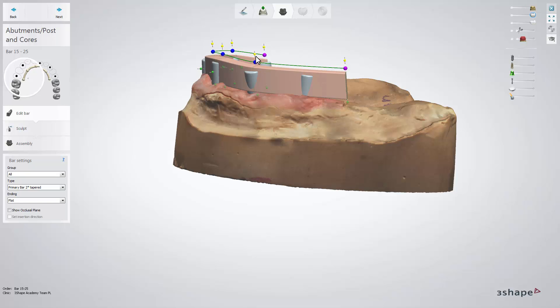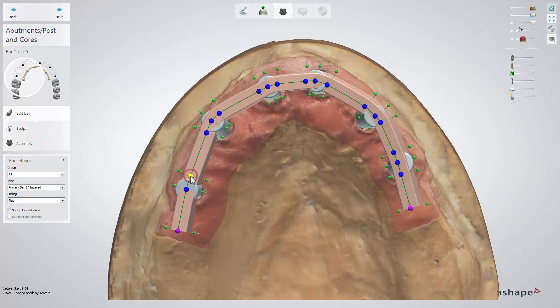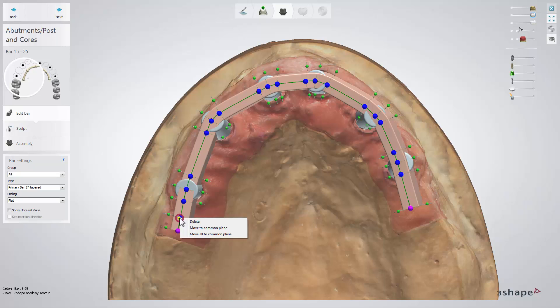If you need more control points, simply left-click on a green line on the bar. If you need to remove any of them, right-click on a control point and select delete.